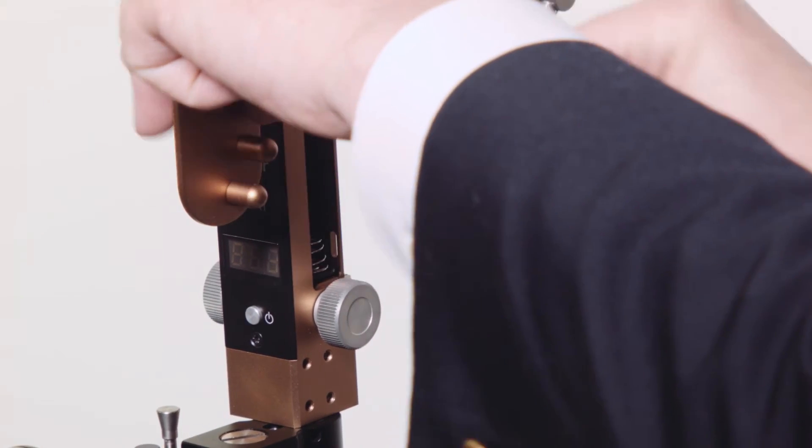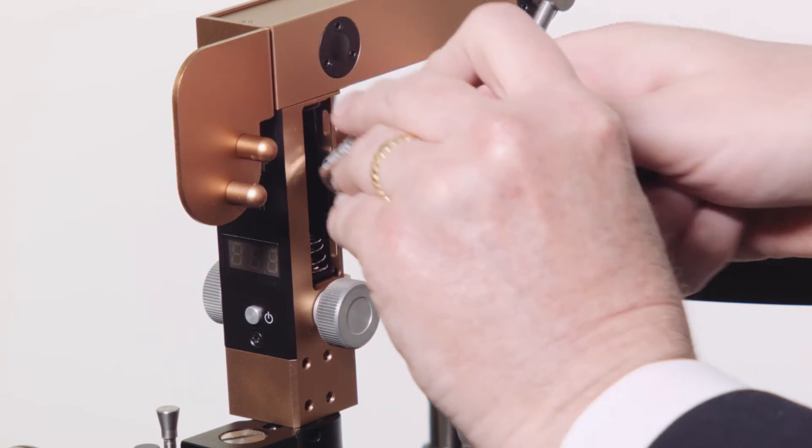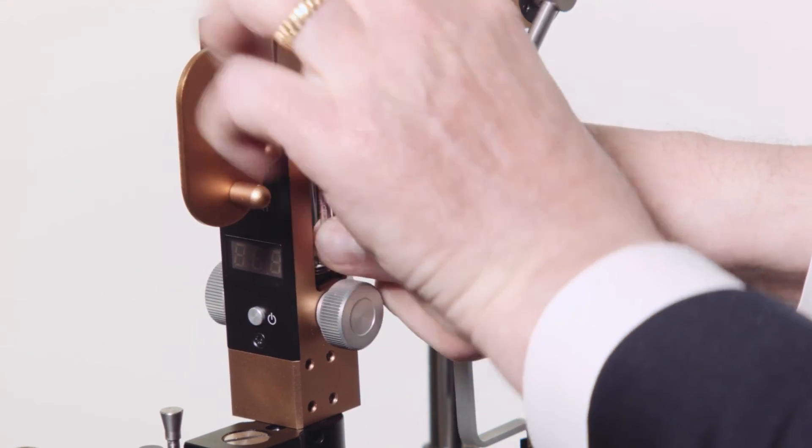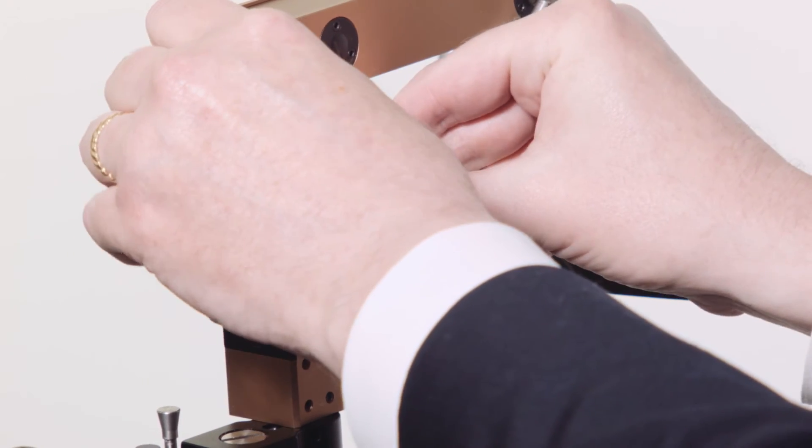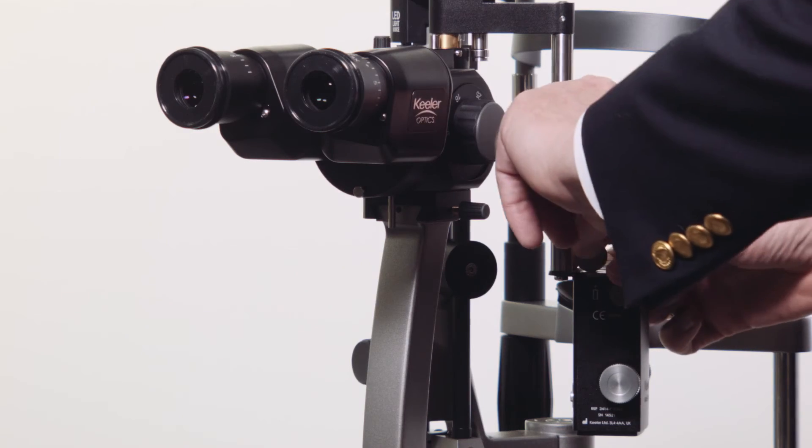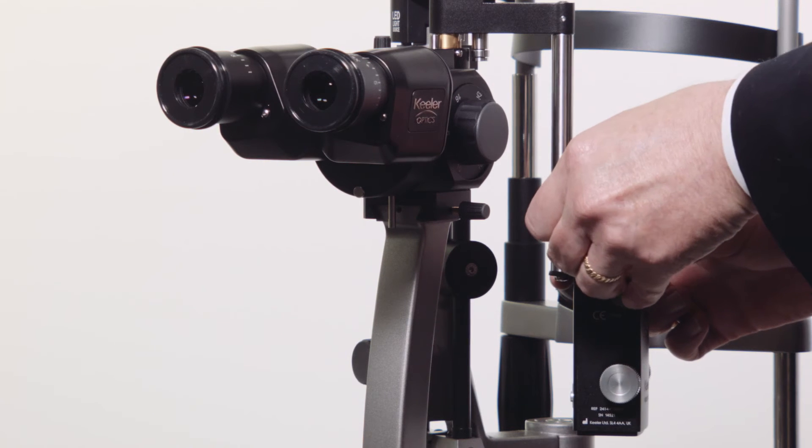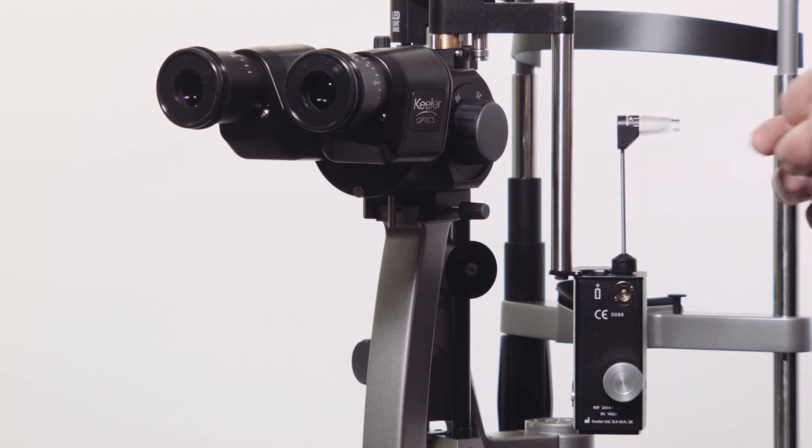To change the D-K-AT battery for the Z-type mount, press in and slide off the battery cover, noting that the positive terminal of the battery is at the top. To change the battery for all other mounts, use a screwdriver or small coin to undo the battery cover on the top of the unit.